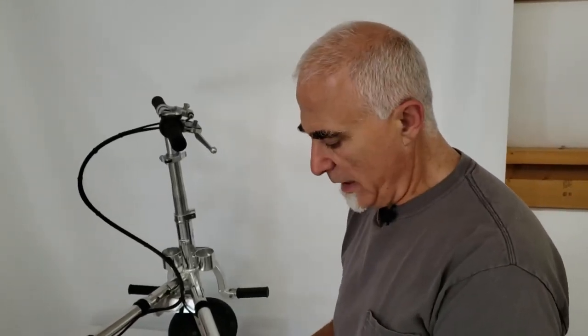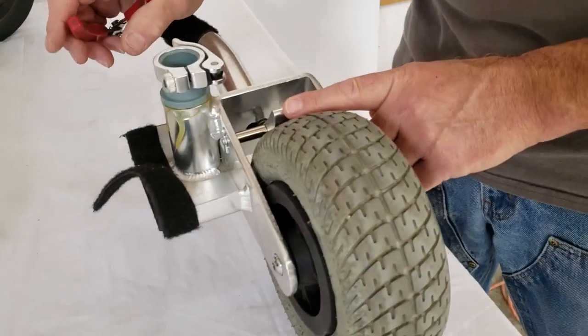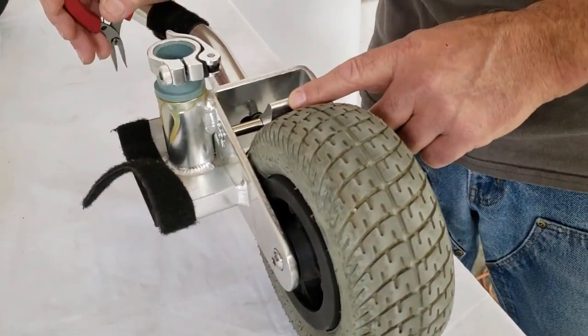Hi folks, Tony at TravelScoot again. Today in this video I'm going to show you how to replace the brake shoes on the old belt driven TravelScoot mobility scooter.